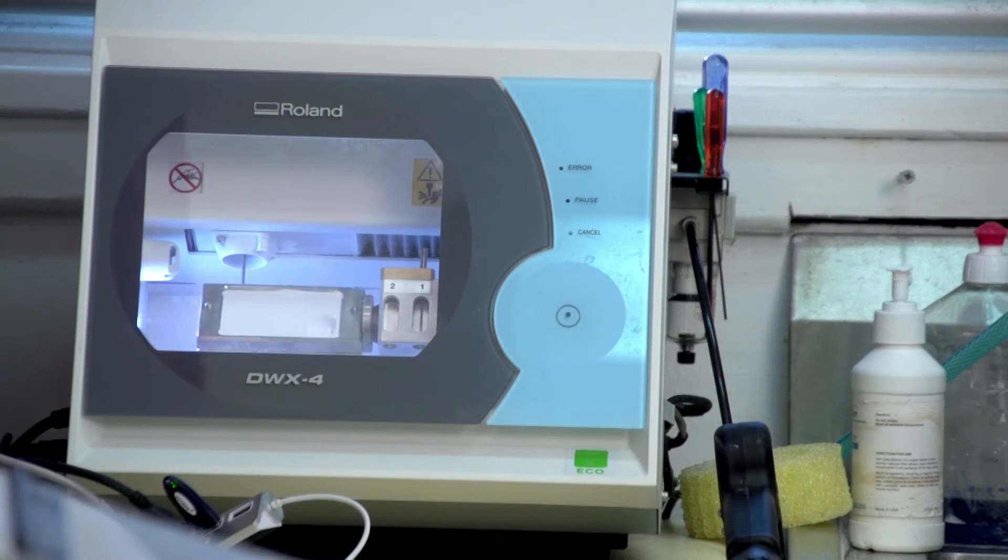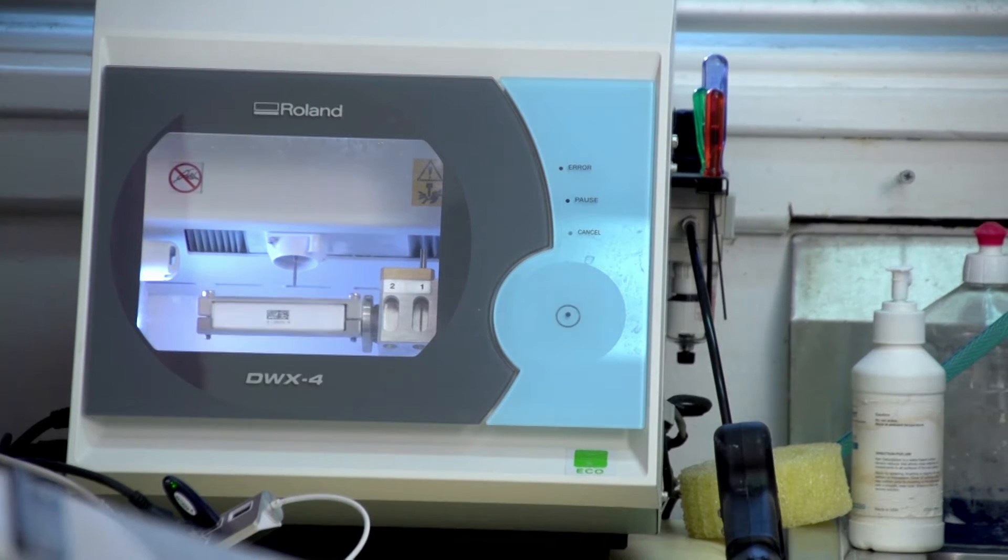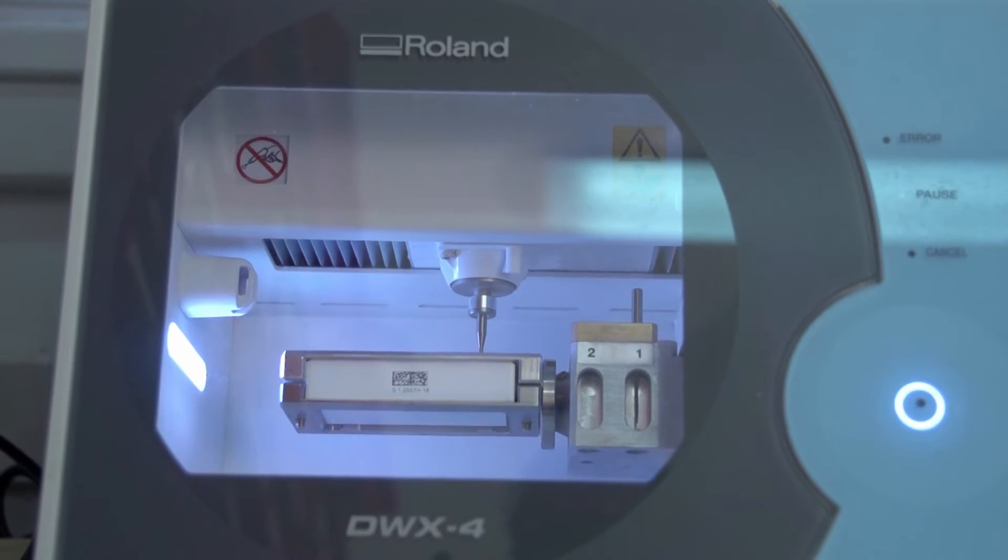I have a Roland DWX4 four-axis mill in the practice. We've had that for about one year. There are many reasons why I chose a DWX4 and they included the ability to create and mill restorations that were useful in rehabilitating our patients. It also was based on the recommendation from colleagues of mine in the dental industry about the reliability and the suitability of the product.